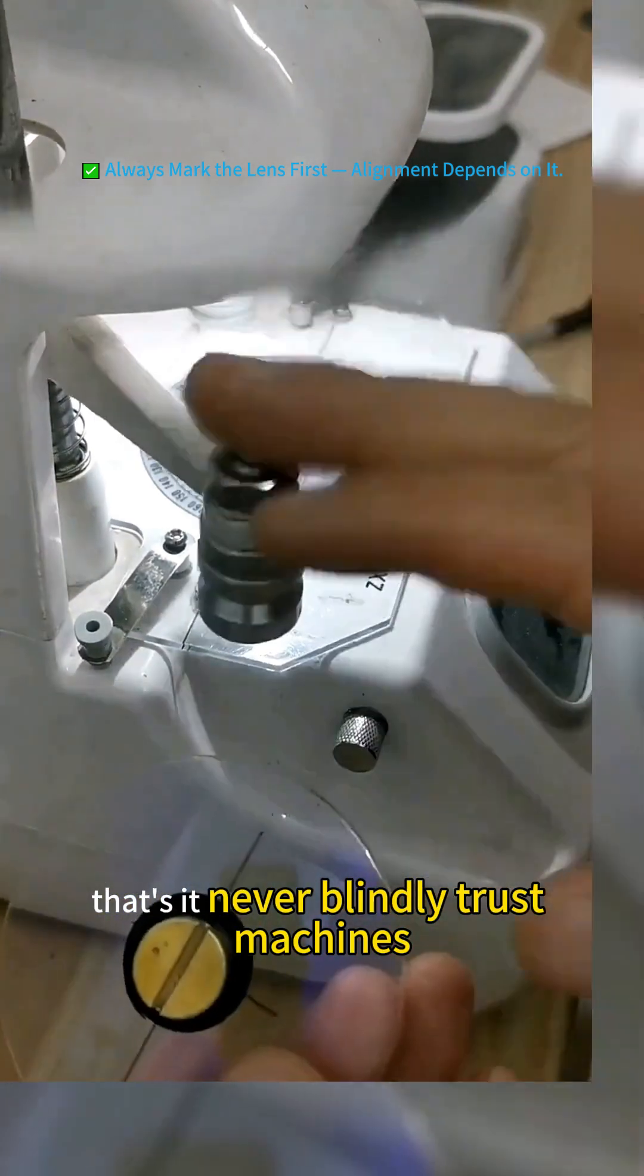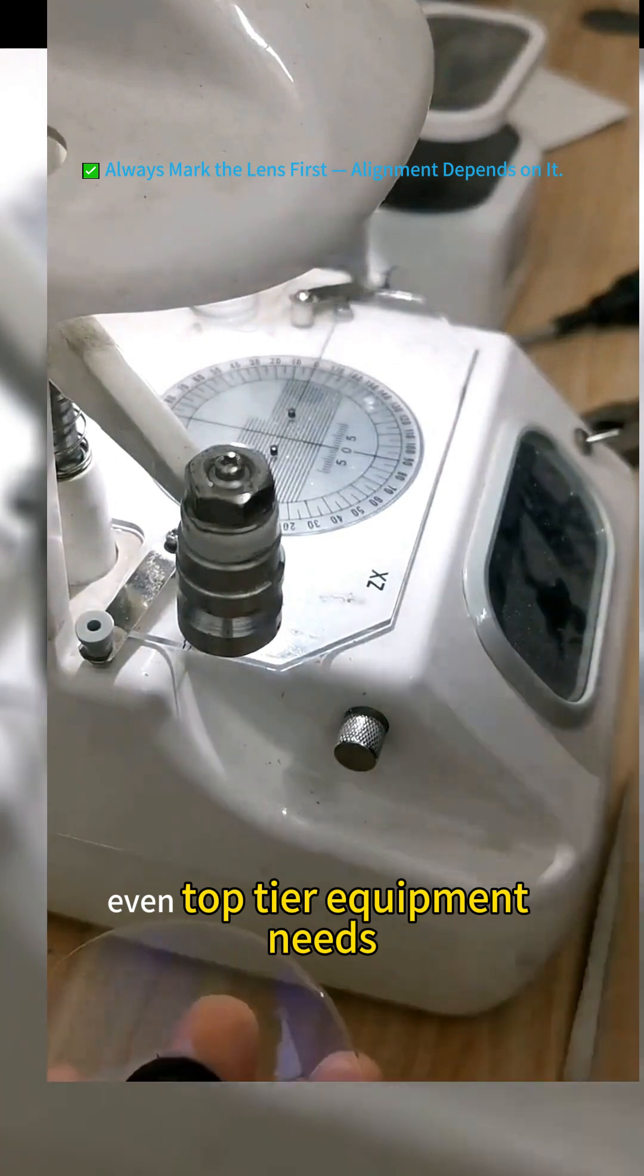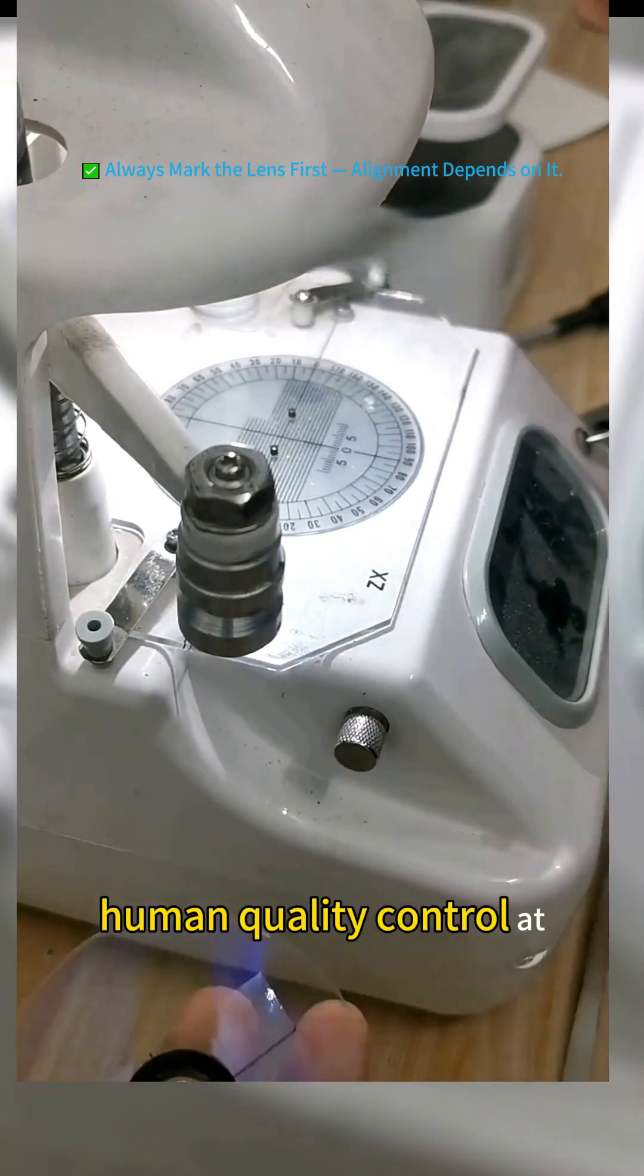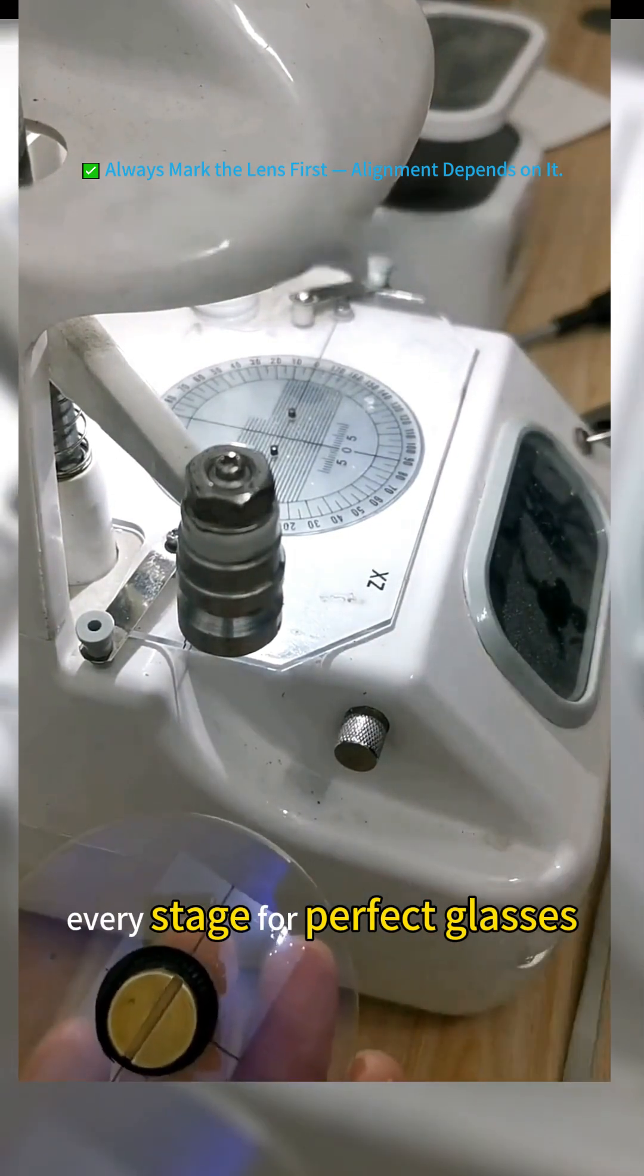That's it, never blindly trust machines. Even top tier equipment needs human quality control at every stage for perfect glasses.